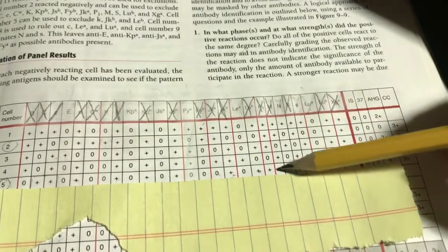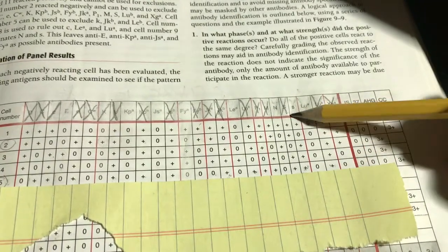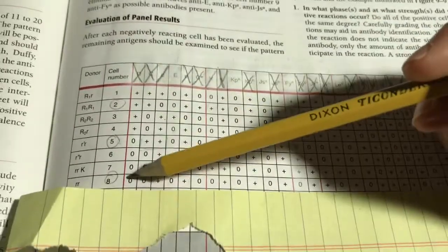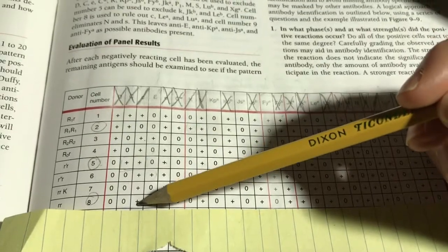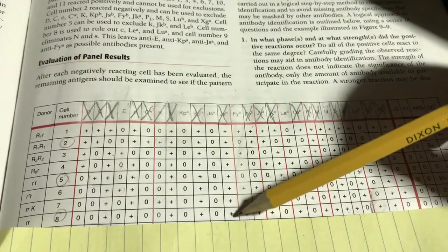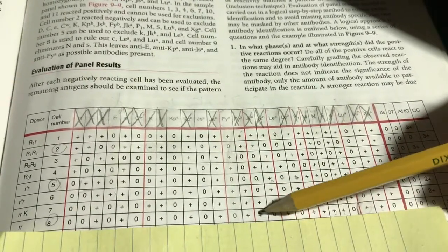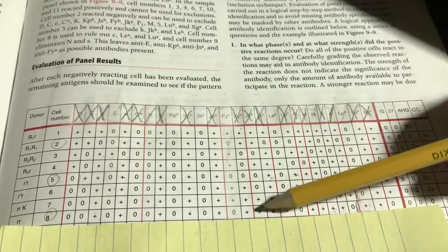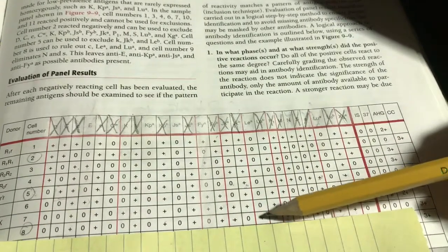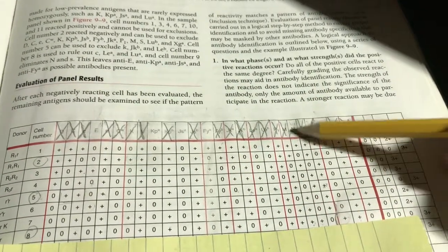JKA, JKB, excuse me, homozygously expressed can mark it off. M was already marked off completely. I'd used this before for a video, so excuse the erasers. Big S was marked off. Little S is here, heterozygously expressed. Can halfway mark it off.